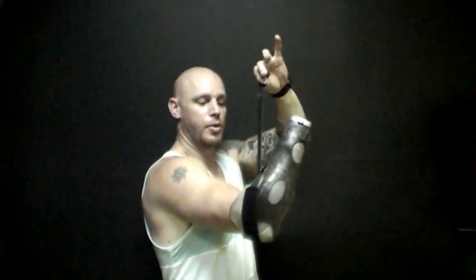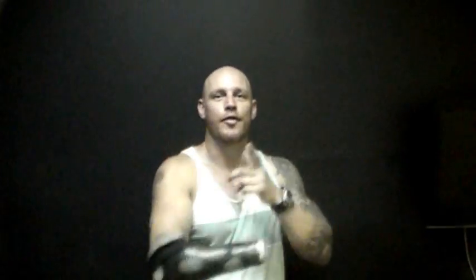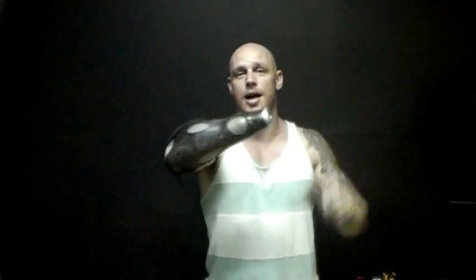Then you've got the Velcro, which locks under the elbow — just pull that through and lock it in. That's your three-prong process of keeping the arm on: you've got the pin, the rubber over your elbow, and the Velcro to secure it onto the end of your elbow. That's not going to come off.